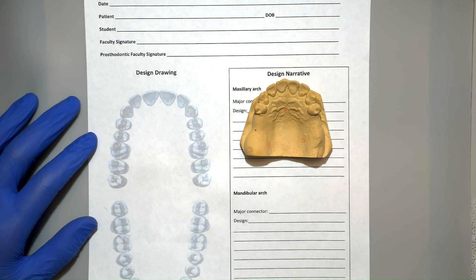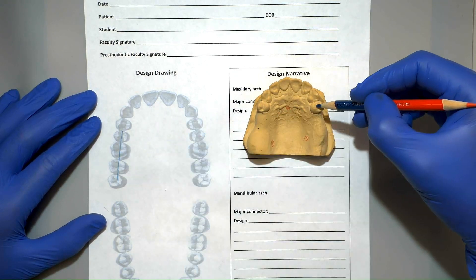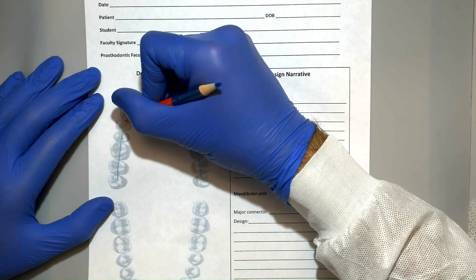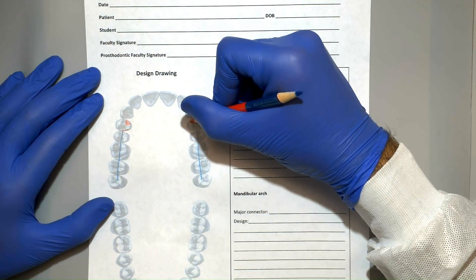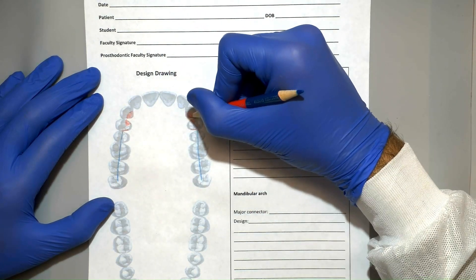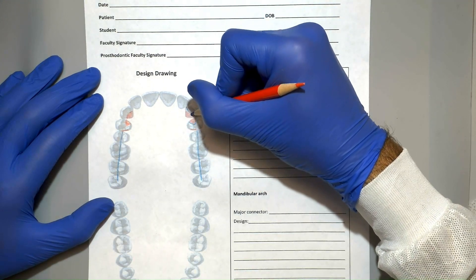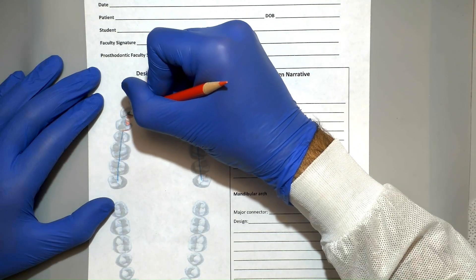Now we're going to go ahead and draw our design on paper. I use the cast to identify which teeth are missing and mark them with a blue line going through the center of the missing teeth. I'll now use the red side of the pencil to draw all the different rest seats on all the teeth. This includes the mesial rests for the RPI as well as the cingulum rests for the indirect retainers. I'll now switch over to the blue side of the pencil and outline each red rest seat with a blue outline representing the rest.